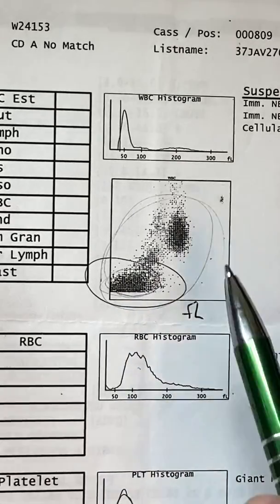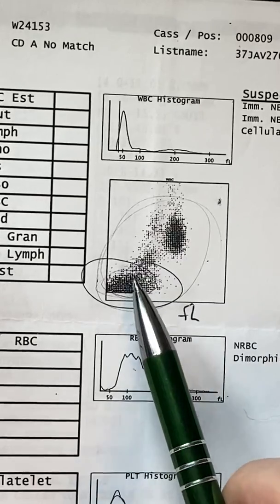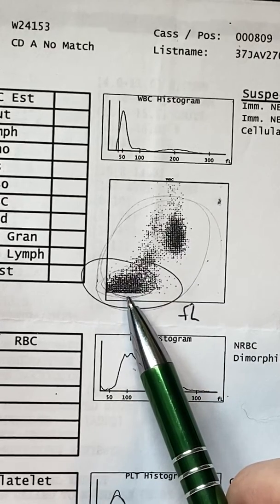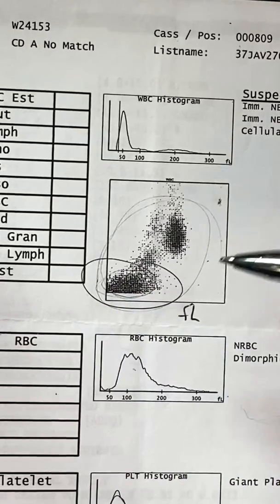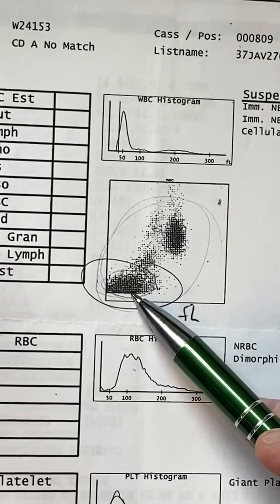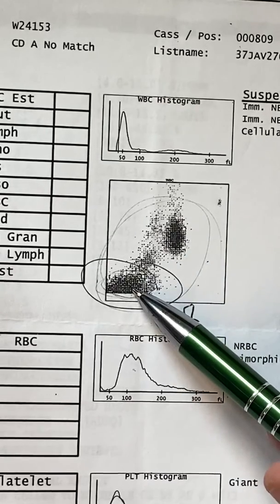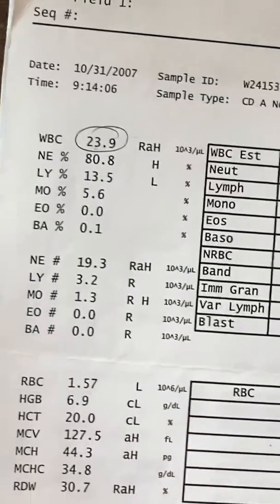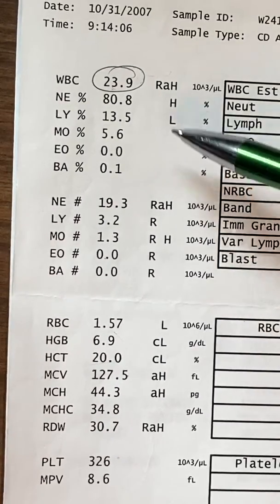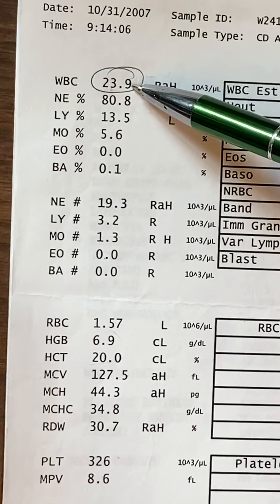As you know from a previous lecture, nucleated red blood cells are not a normal finding in a healthy individual. So it's not a good thing to have a ton of NRBCs present. Going back to the analyzer output, this white blood cell count looks a little bit elevated.